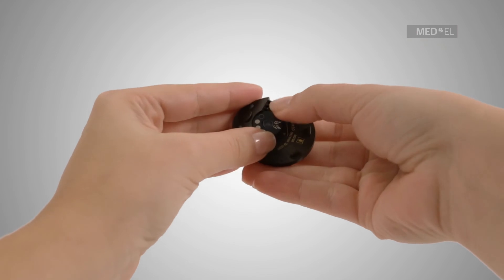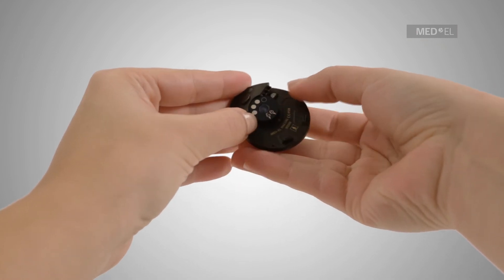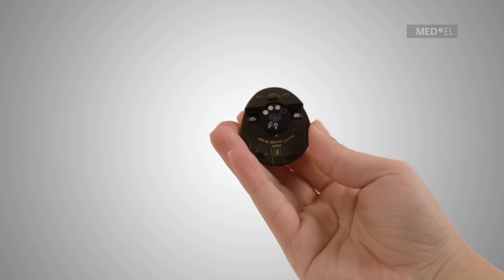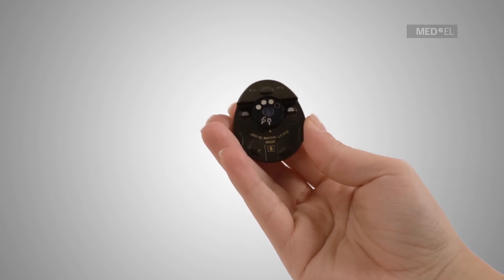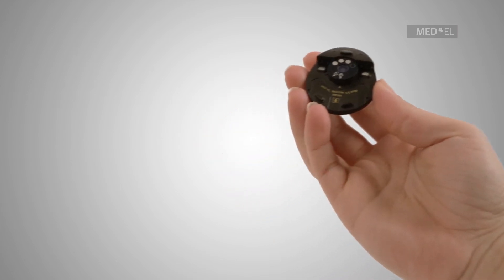There are four different strengths of magnet: soft, standard, strong, as well as an optional super strong magnet strength. Your audiologist will help you to select the right one.